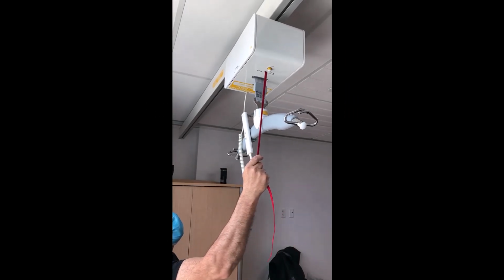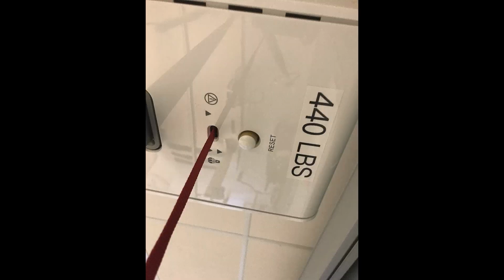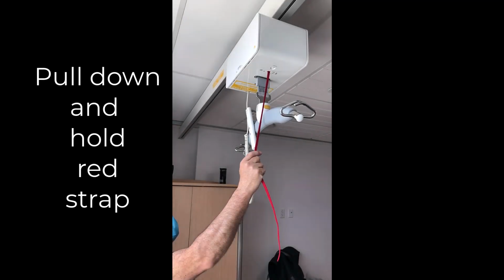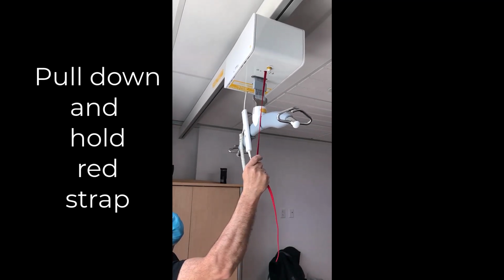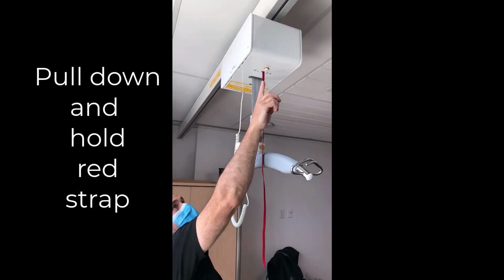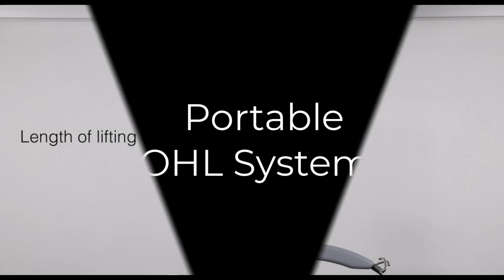Pulling the red strap will cause immediate stoppage of the raise and lower function of the motor. To deactivate the emergency stop, push in the reset button, located on the motor. Just like the Handicare motor, emergency lowering of the carry bar is done by prolonged pull of the red strap. In all models, regardless of manufacturer, the carry bar can be lowered far enough to lift a fallen patient off the floor.